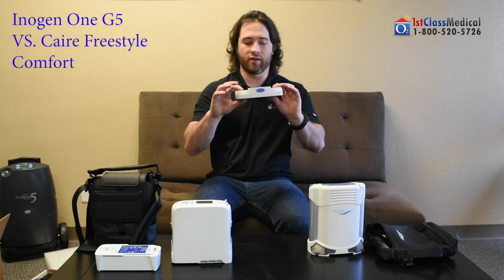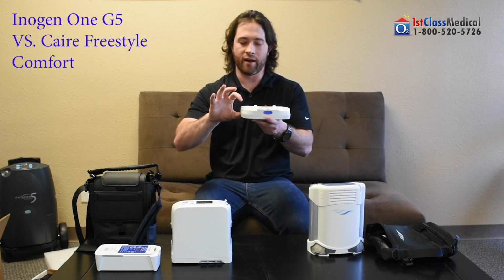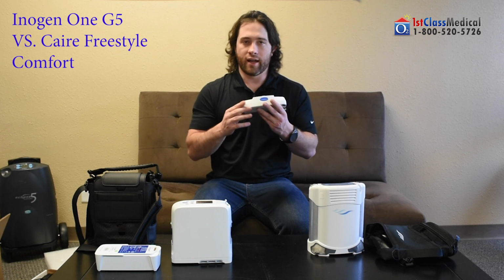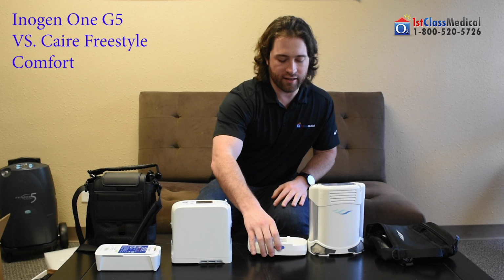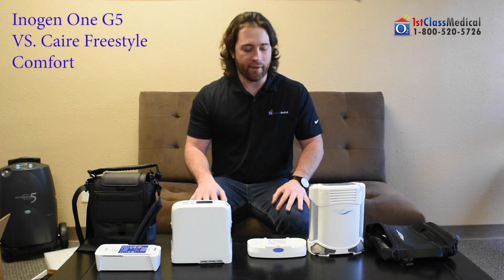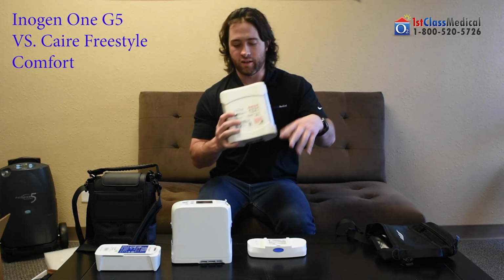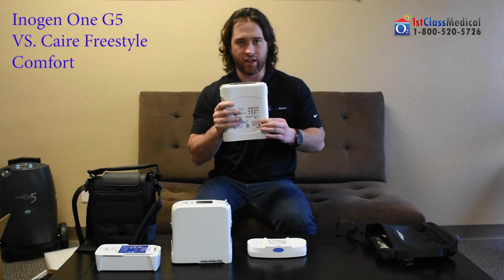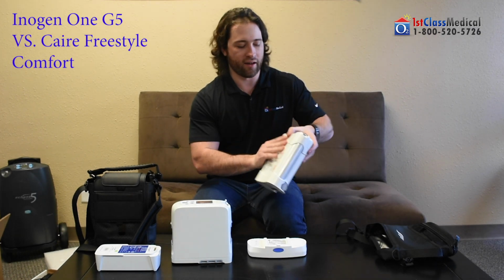Caire Freestyle Comfort has the same concept. This is that 8-cell battery, so the 16-cell battery is going to be about twice the size. This is going to give you 4 hours on a setting of 2, and then the 16-cell will give you 8 hours on a setting of 2. So the battery life you're looking at is pretty identical there. These two units are FAA approved, so on the back here, and on this unit as well, you'll see FAA approved stickers. They're 2 big manufacturers, so you shouldn't have any issues when flying, but just in case, they do have the sticker on the back there.